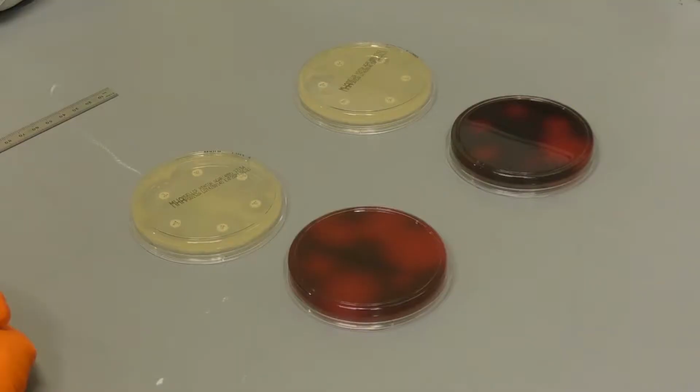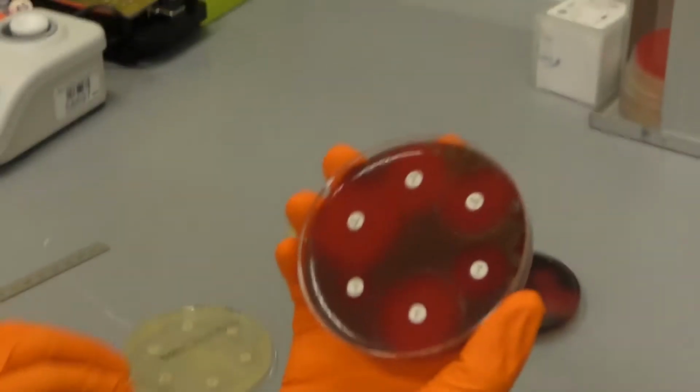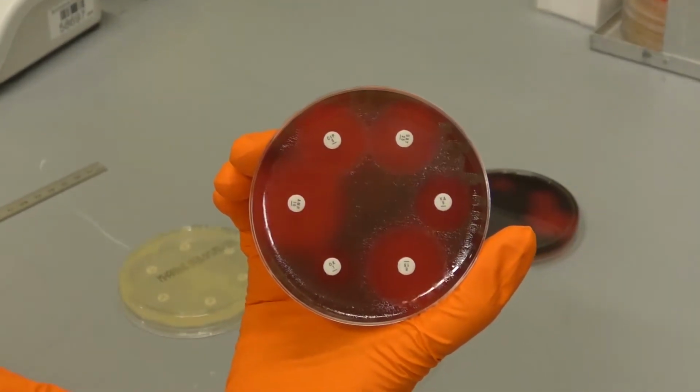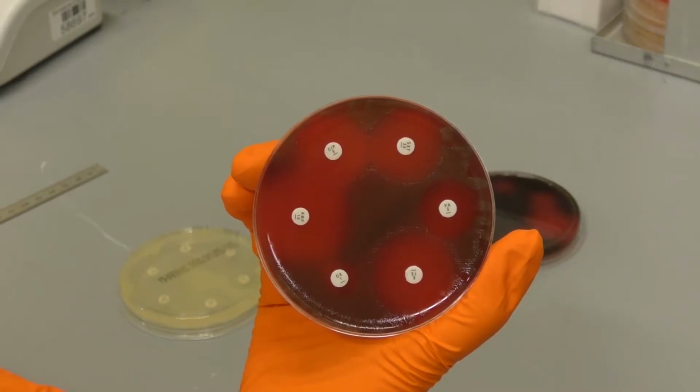We're now going to look at how to read an antibiotic susceptibility test. When you remove the plates from the incubator, record the temperature, as well as ensure that they have been in the right type of incubator, i.e. 5% CO2 for Streptococcus pneumoniae and a standard incubator for E. coli. Ensure that you always read the matching control plate at the same time as you read the specimen test plates. The control strain should be sensitive to all antibiotics tested. If there are any discrepancies, record this and repeat the assay.